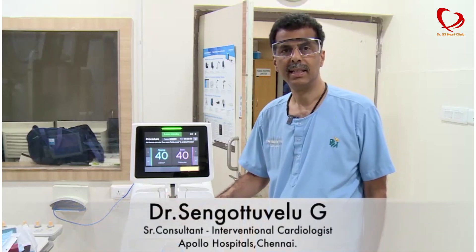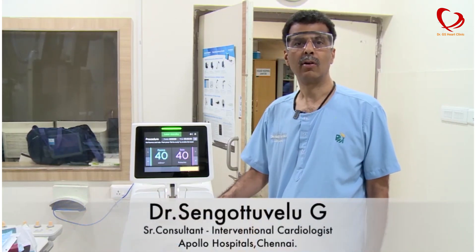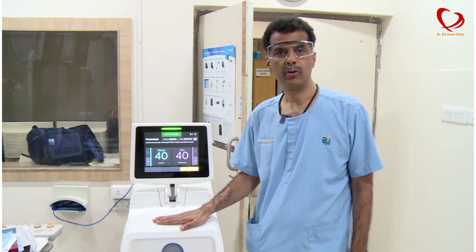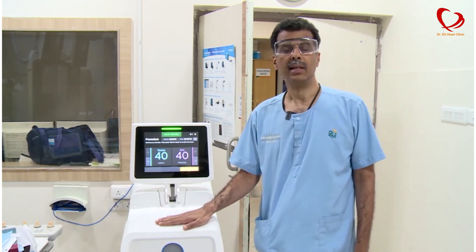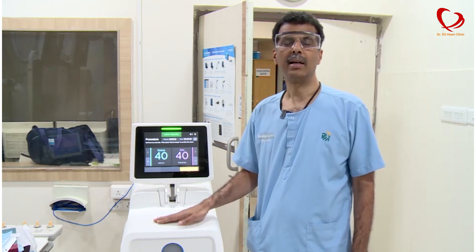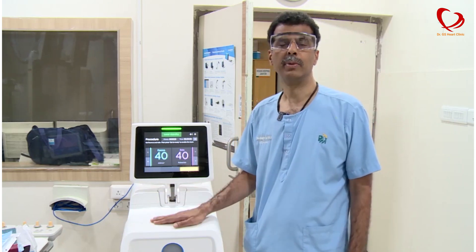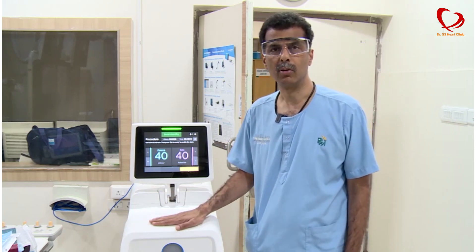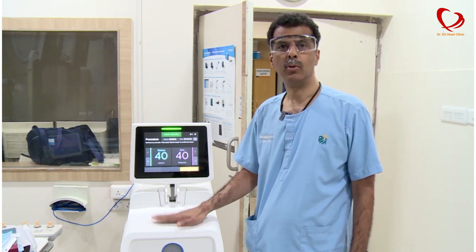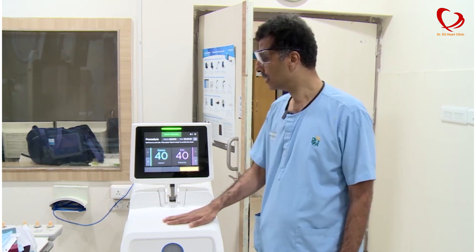This is the laser console for intracoronary excimer laser, which is very useful in certain situations where the block is sometimes very hard and difficult to cross with the conventional balloon. We use it routinely in the cath lab to remove the hardened blocks using the excimer laser.